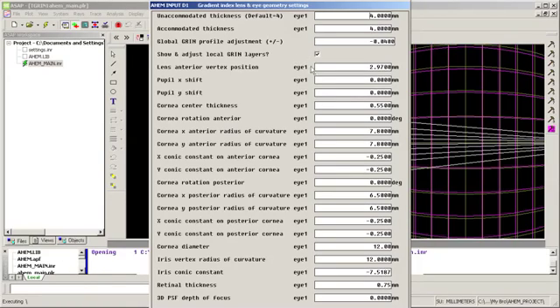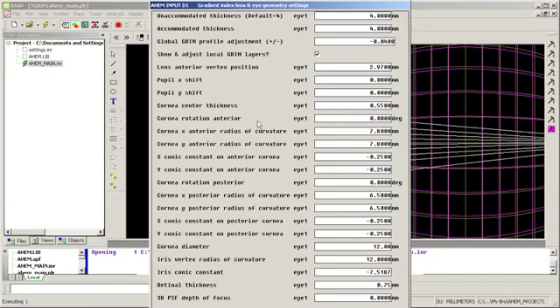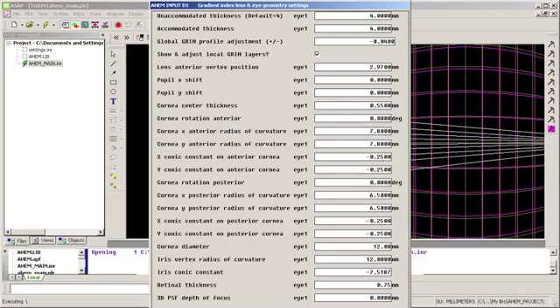So I have that box checked. And then the rest of this data is relevant to the geometry of the rest of the eye. Click OK.